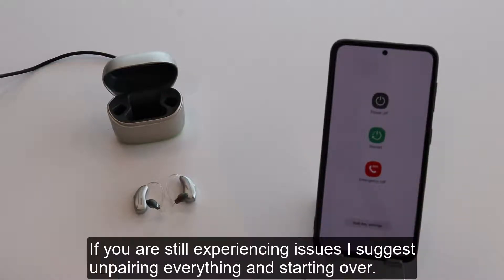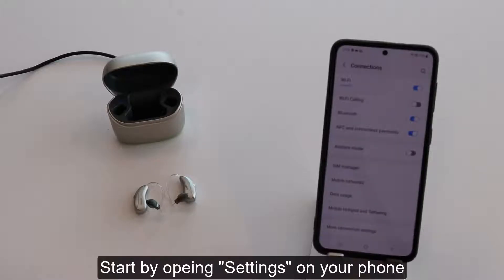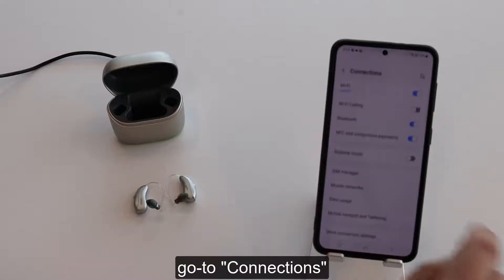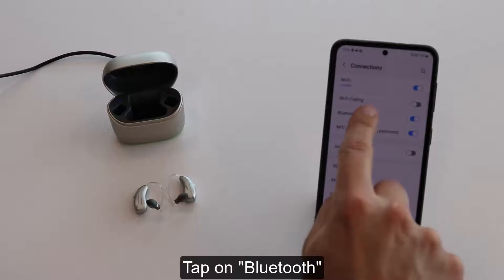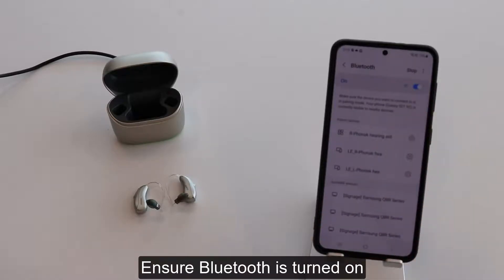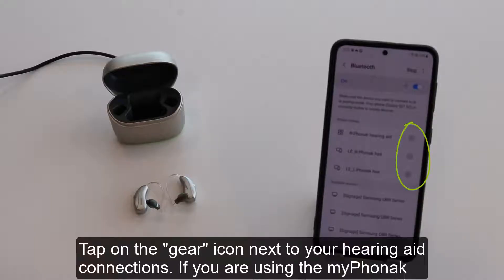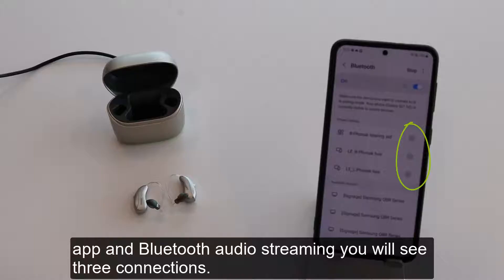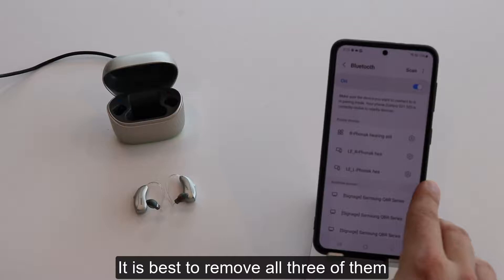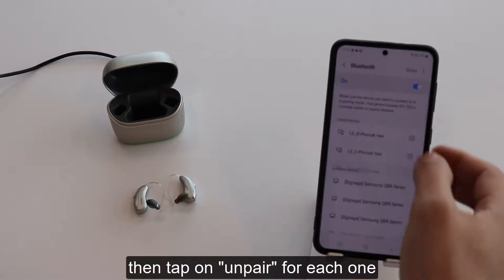If you're still experiencing issues, I suggest unpairing everything and starting over. Start by opening Settings on your phone. Go to Connections, tap on Bluetooth, and ensure Bluetooth is turned on. Tap on the gear icon next to your hearing aid connections. If you're using the My Phonak app and Bluetooth Audio Streaming, you will see three connections. It is best to remove all three of them. Tap on the gear and tap on Unpair for each one.